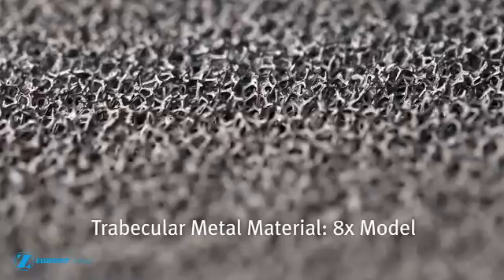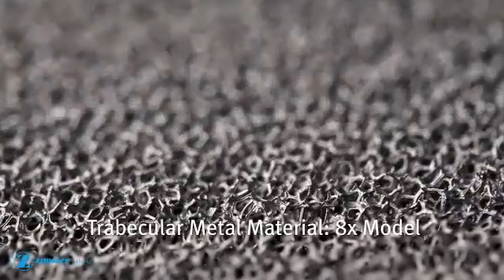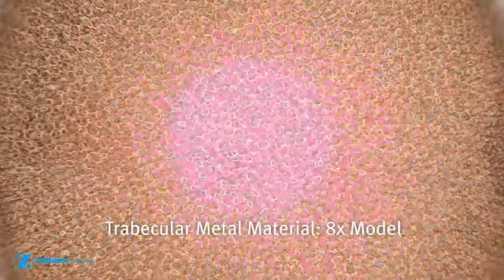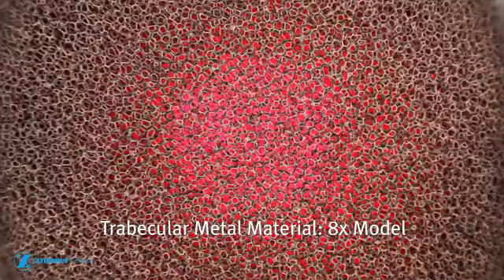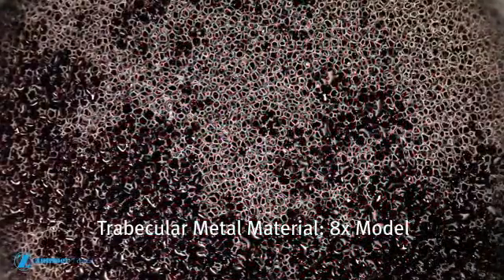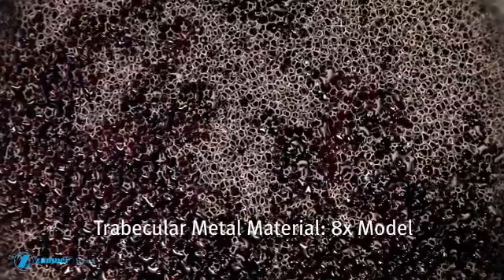Inspired by the natural structure of cancellous bone, trabecular metal technology is a biomimetic material that adds a new dimension to implant dentistry. Moving beyond simple surface technology, this material has a uniform three-dimensional cellular architecture with up to 80% porosity. Note the ability of blood to perfuse throughout the pores of the material.